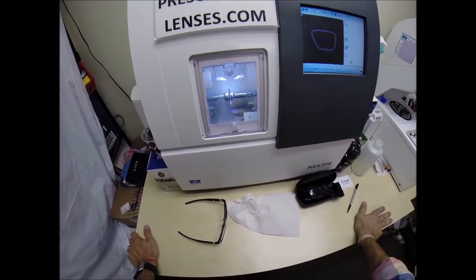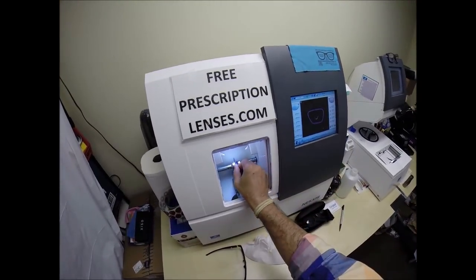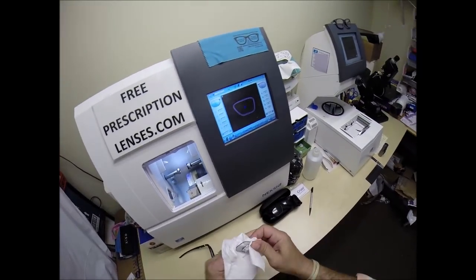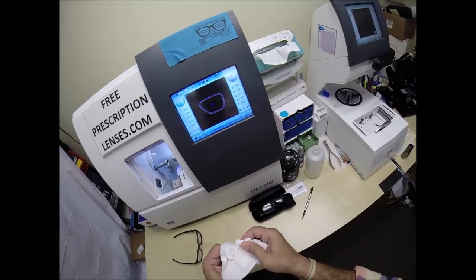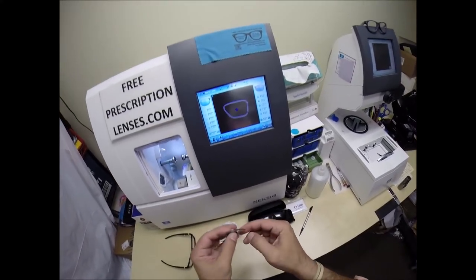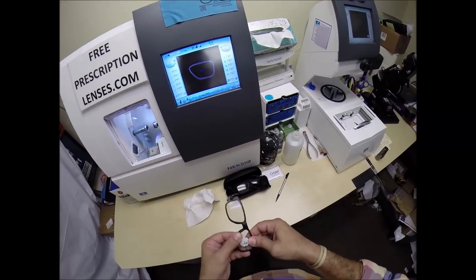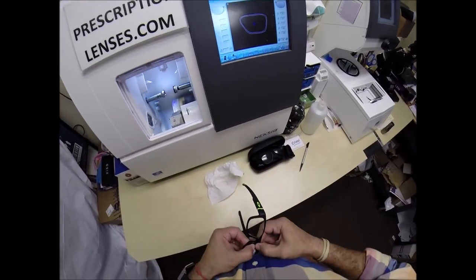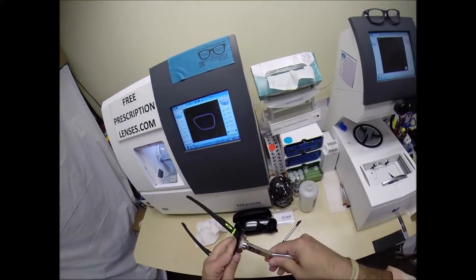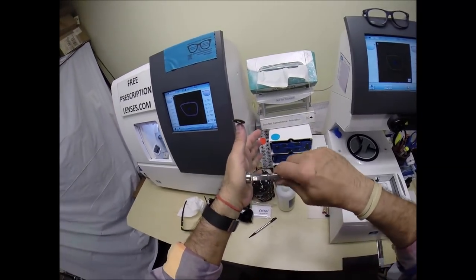Frankie, open the door with your mind — hey, pretty good, first day on the job! Let's take the lens out, we're going to dry it off, make sure there's no optical sawdust on the edge of your lens. Let's go ahead and tuck it into the outside of the frame — using my thumbs I press down the nose and it snaps right in. Let's go ahead and take the block off, dry it off with my hand-approved drying technique.